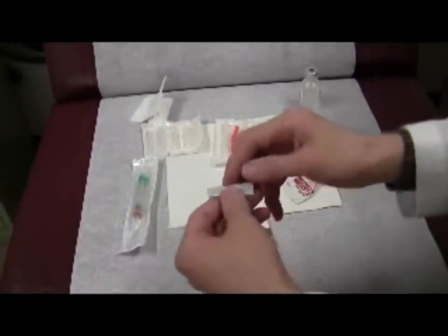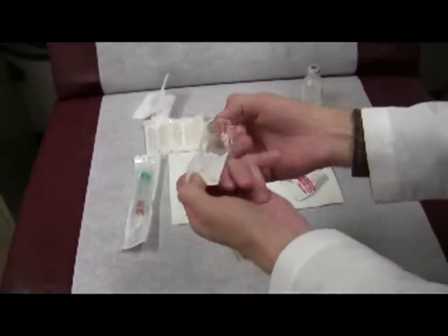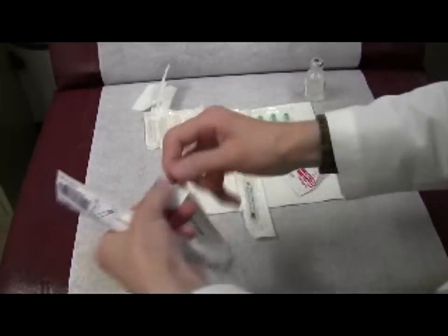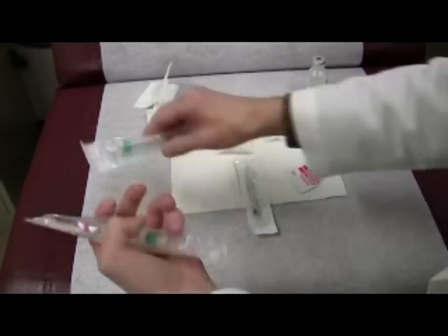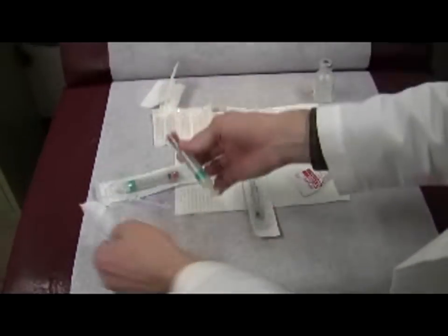You can force them through the paper or plastic side wrapping rather than reversibly undoing the packaging. You can do that, and it's quicker, because it takes time to futz with this — you can just do that and it comes right out.